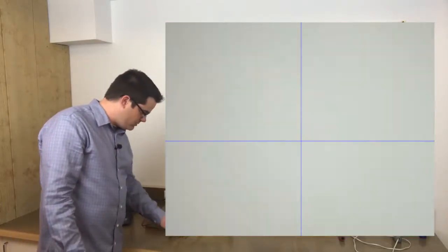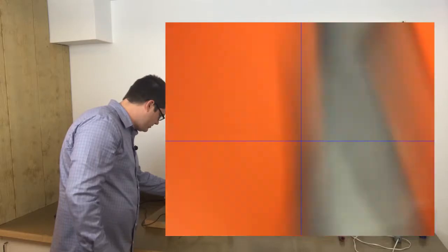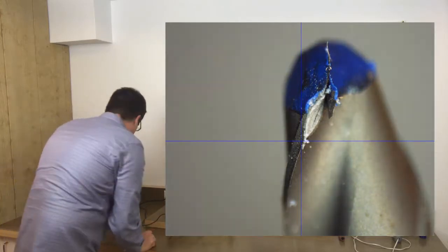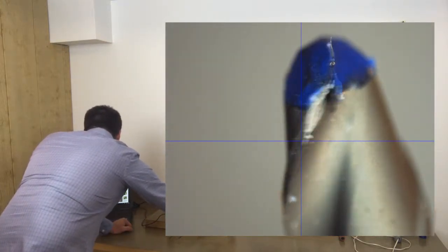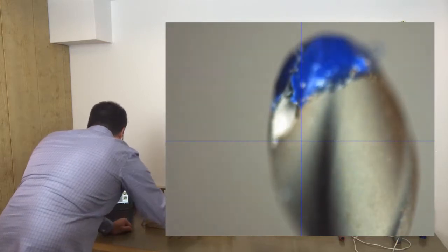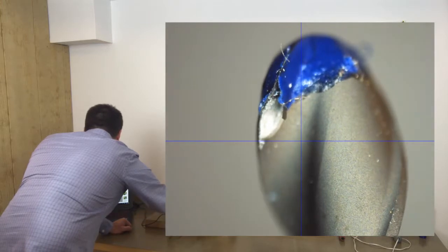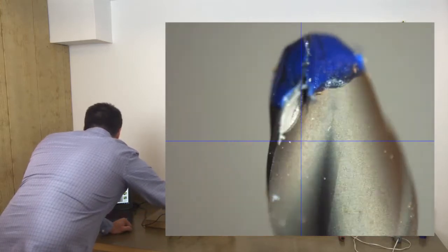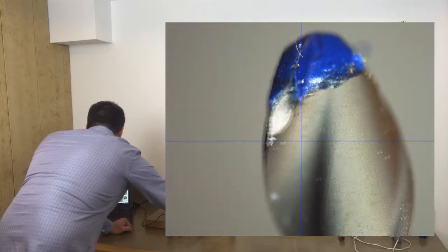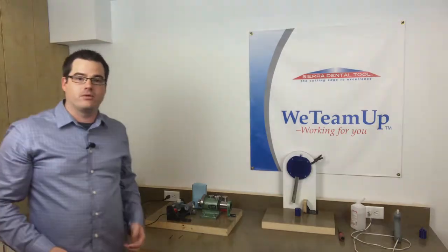And for the final one, this is our tool that hit tile. Oh wow, that is a huge chip. And keep in mind this isn't really that much force. You can definitely test it with a pencil if you have one on your desk. And look that's actually kind of cool—the paint kept the diamond coating intact. You can see the little chip just hanging out on there. It's pretty neat. So this chip would very very quickly result in a lot of wear on the tool.